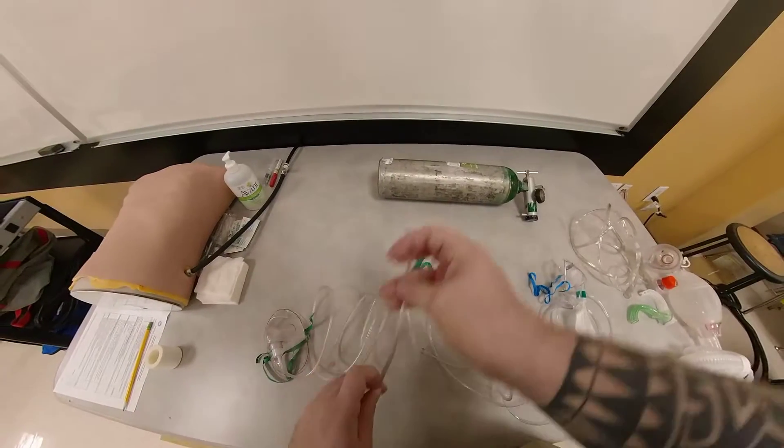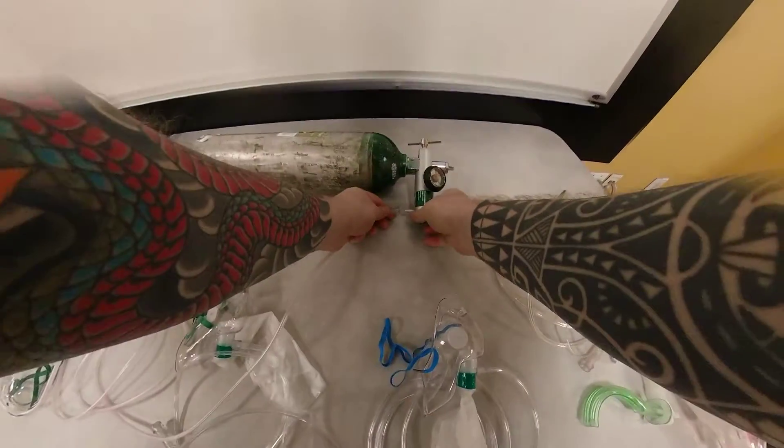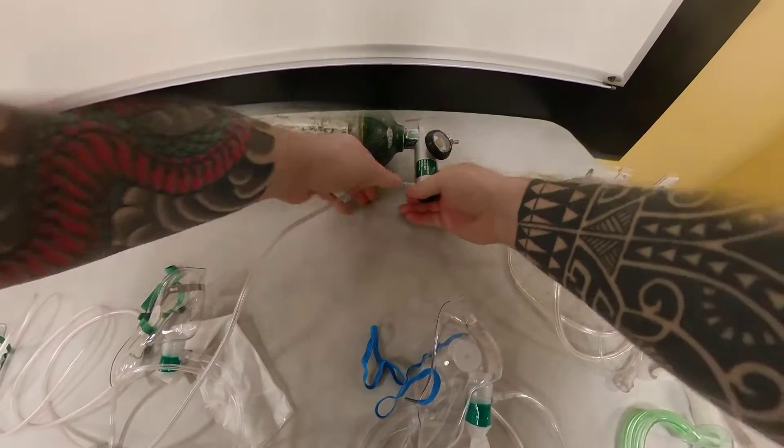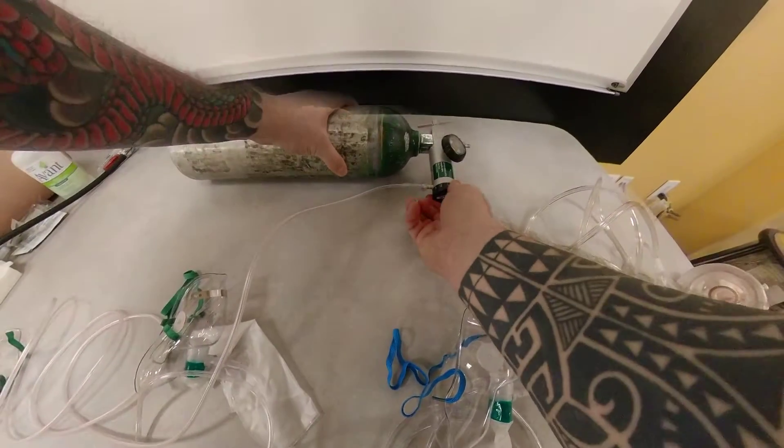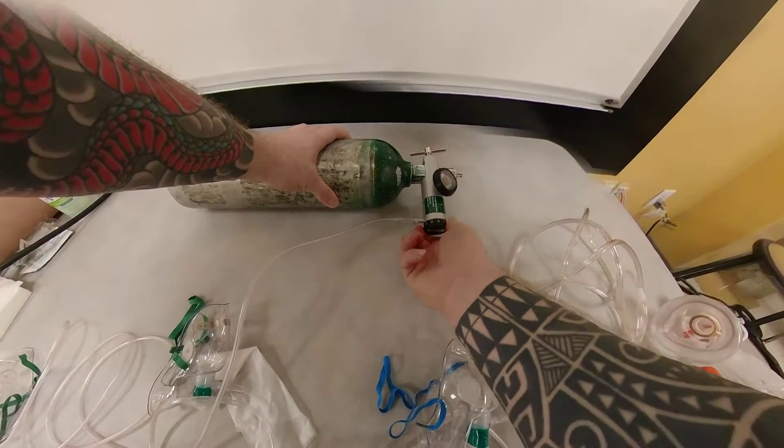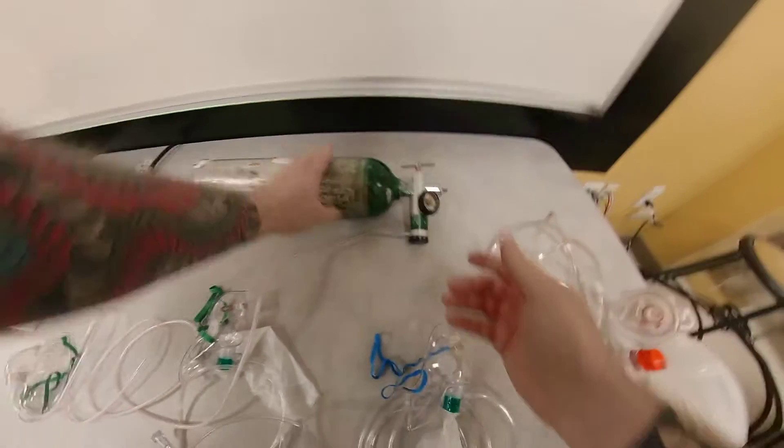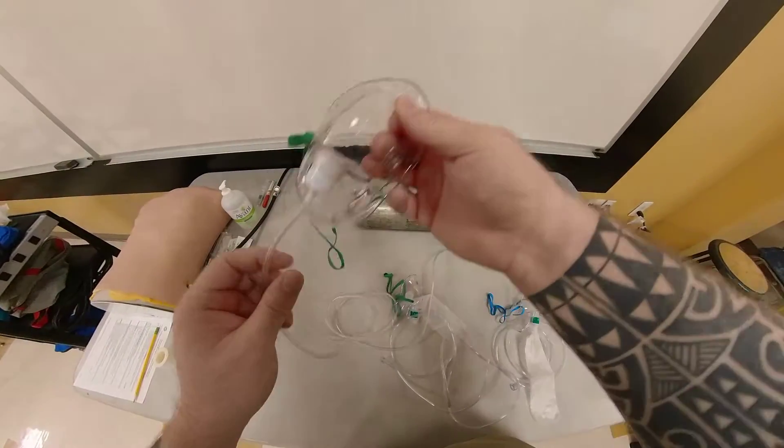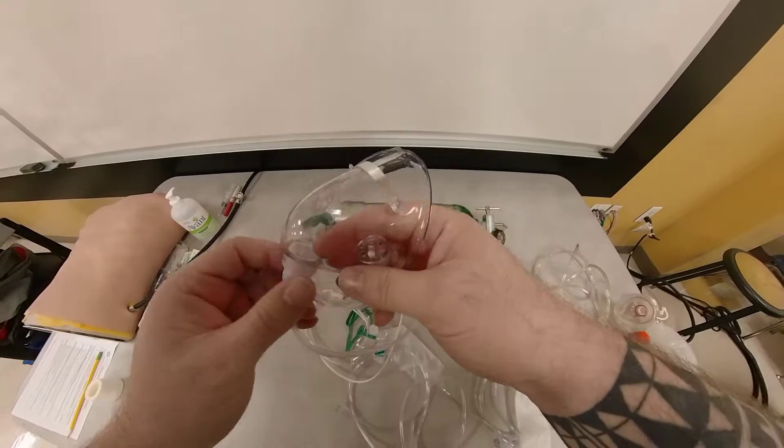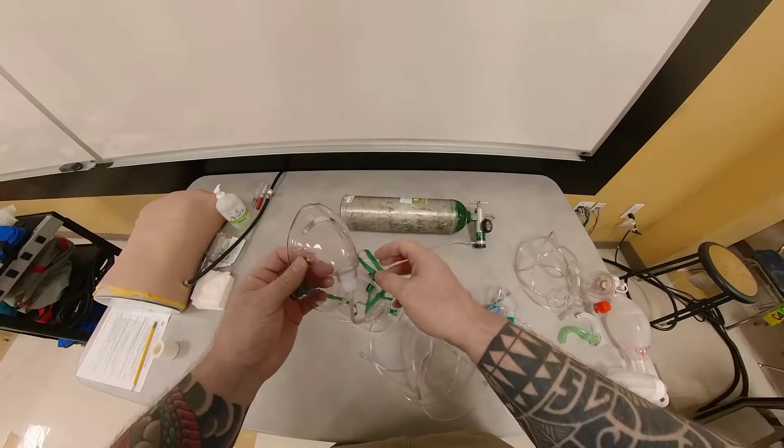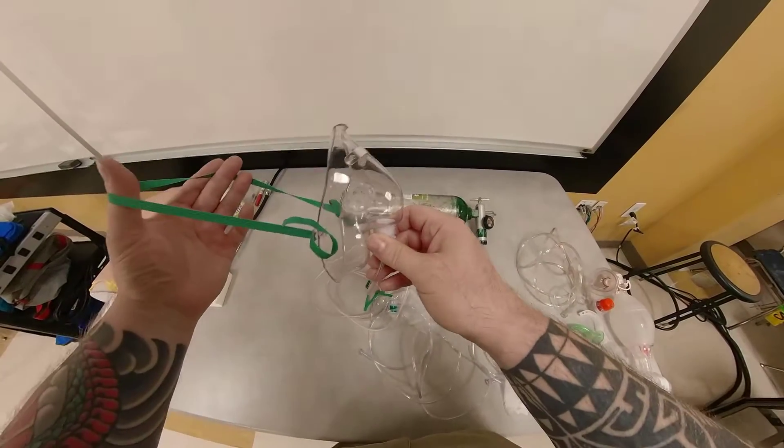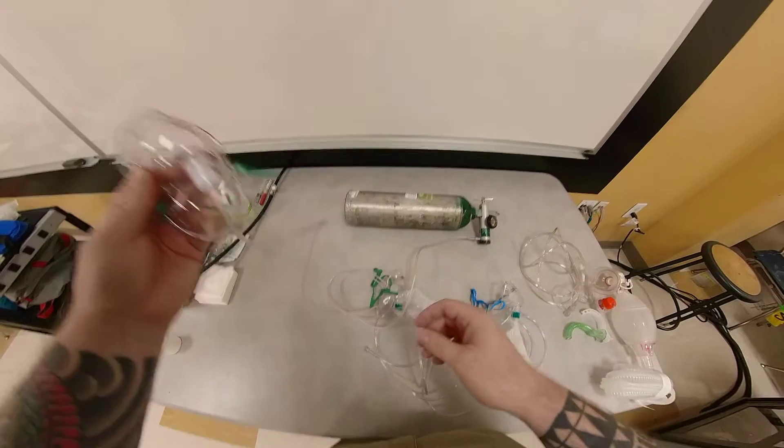Truly speaking, when this device is connected to your oxygen source, and you are ventilating this patient at 15 liters per minute, as our regulator is here, what the patient is getting on this device at 15 liters per minute is about 50% FiO2, or 50% fractional inspired oxygen.